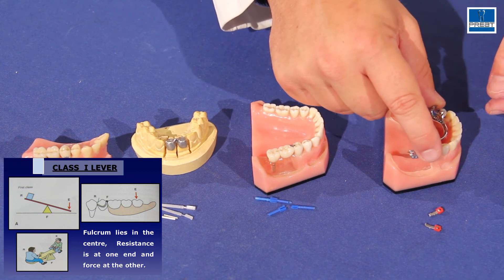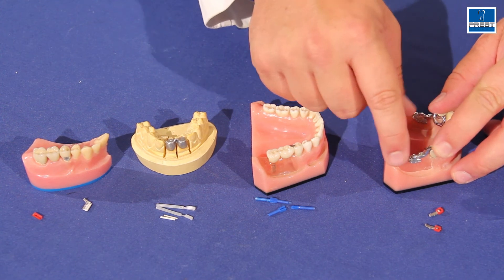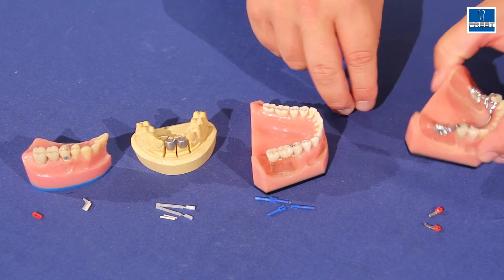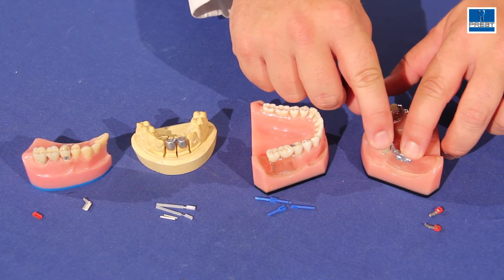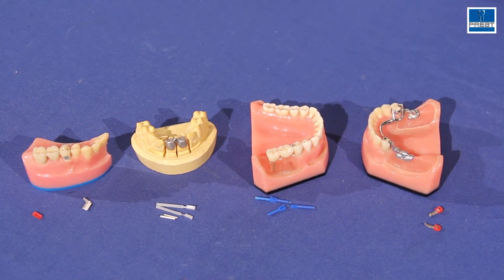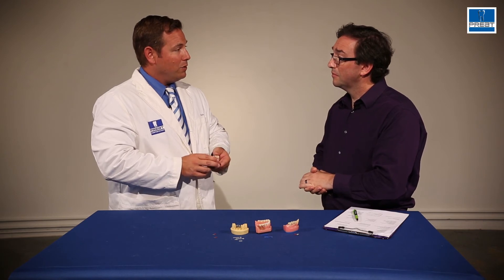So hinges are very nice and easy to work with. This can be used to protect our abutment teeth in any partial denture design used in conjunction with attachments. As the patient functions, as they lose bone and lose that support of soft tissue, that hinge will help protect the abutment tooth. Simple, old-school technique, but I really think it's underutilized today.